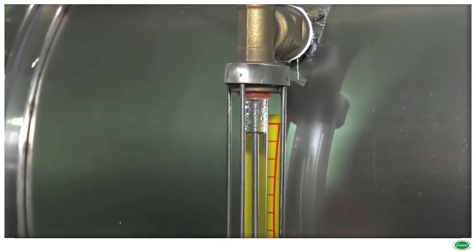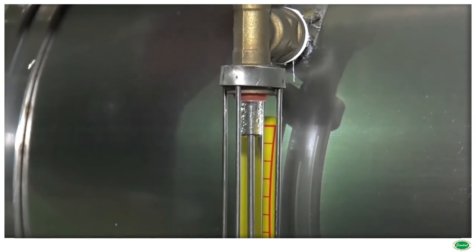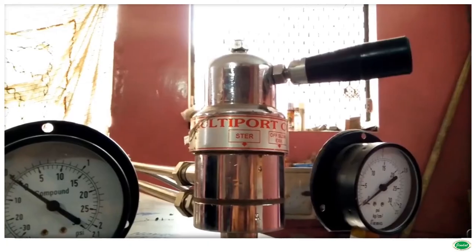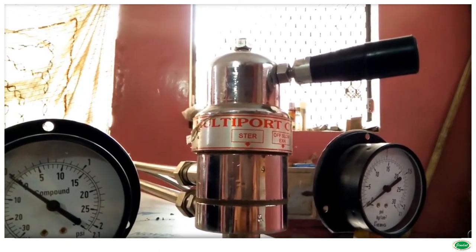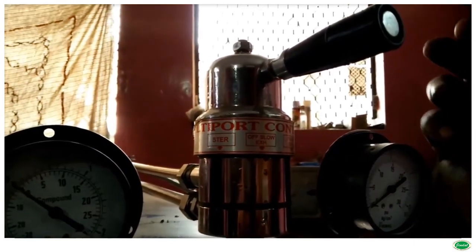All sterilizers are hydraulically tested to withstand 2.5 times the working pressure. The sterilizer is mounted on tubular steel frame with ground leveling screwed flanges. The outer jacket is wrapped with glass wool to minimize heat losses due to radiation.